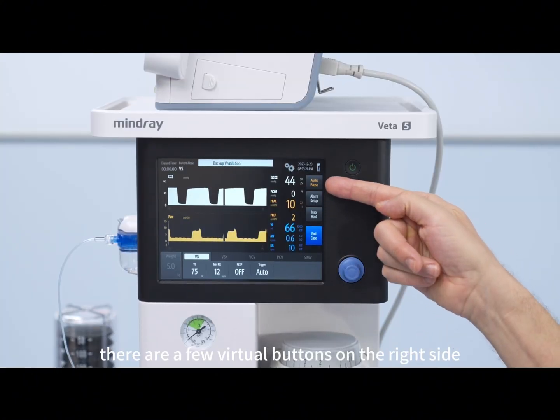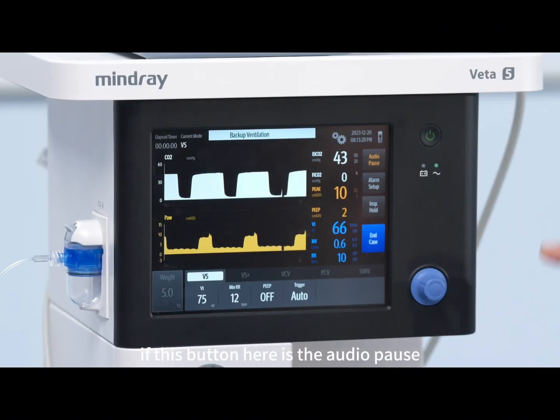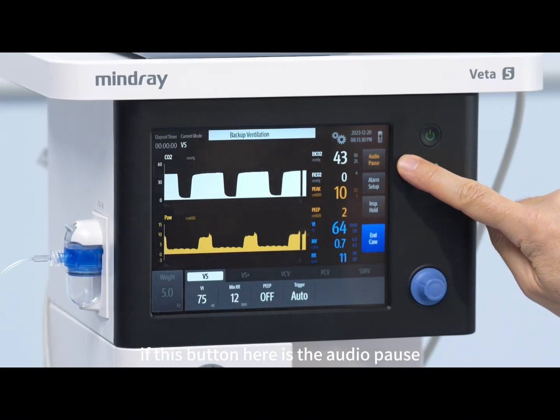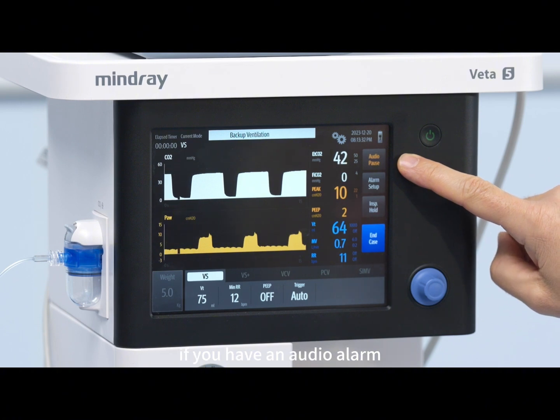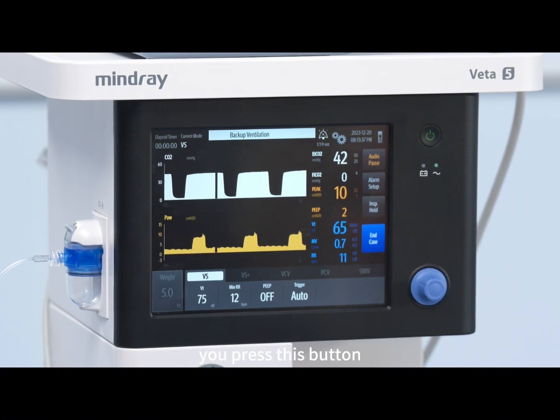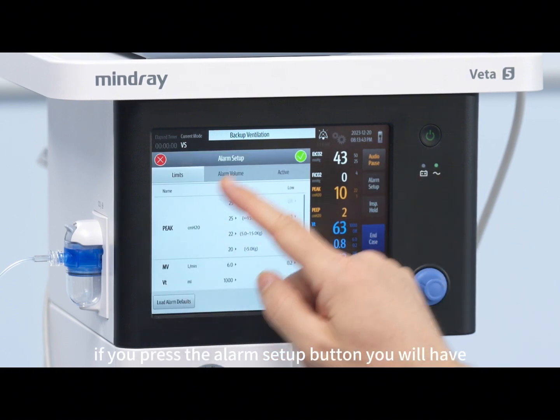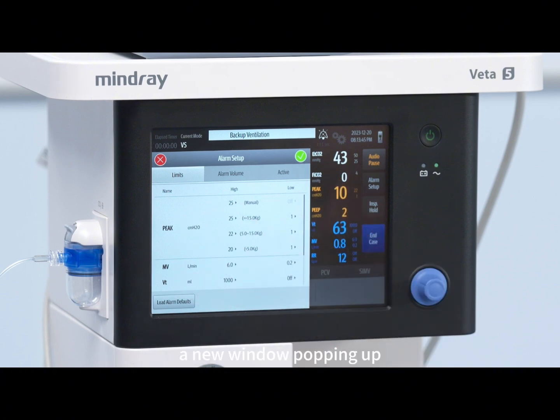There are a few virtual buttons on the right side. Let me quickly explain. This button here is the audio pause. So if you have an audio alarm and you would like to pause it, you press this button and the alarm will be quiet for 2 minutes. Here, if you press the alarm setup button, you will have a new window popping up, which gives you a chance to set the higher and the lower alarm limits separately for each variable.